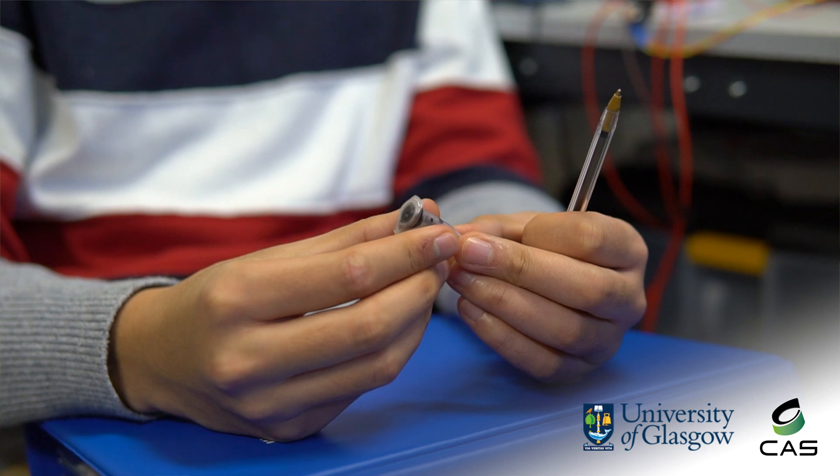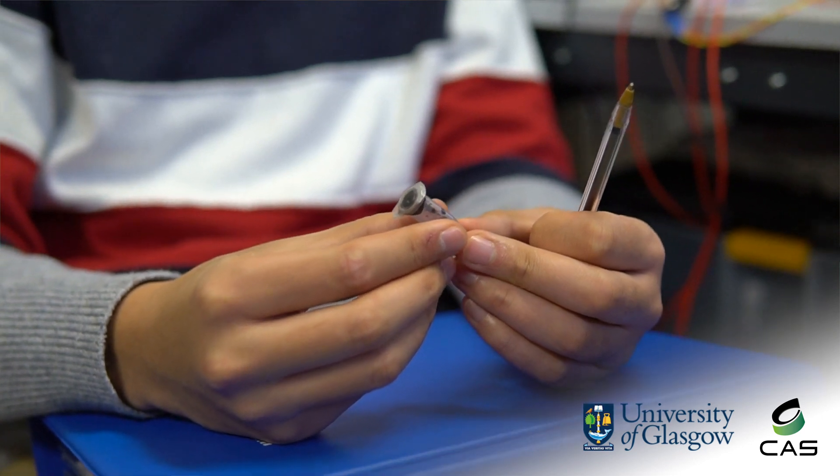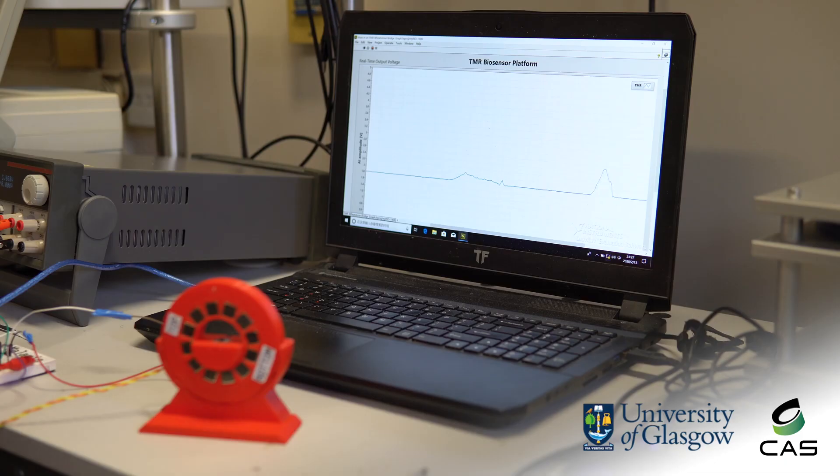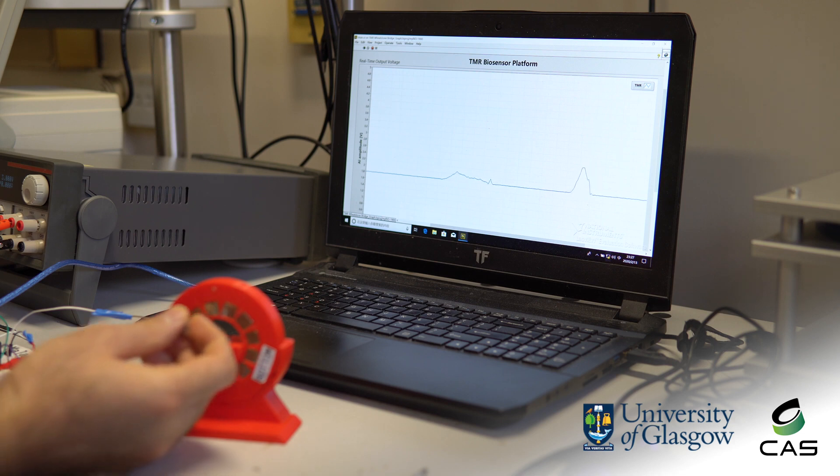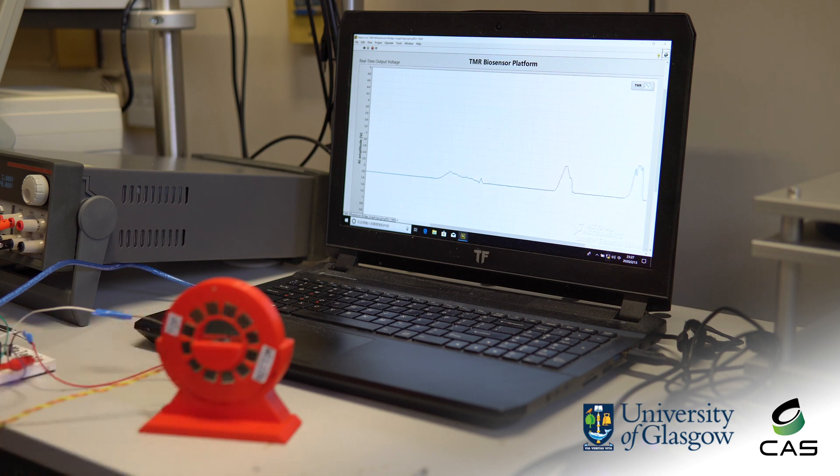We are now taking real-time measurement using a paramagnetic sample. As you can see, if we place the sample on the TMR sensor, there is real-time detection on the LabVIEW interface.